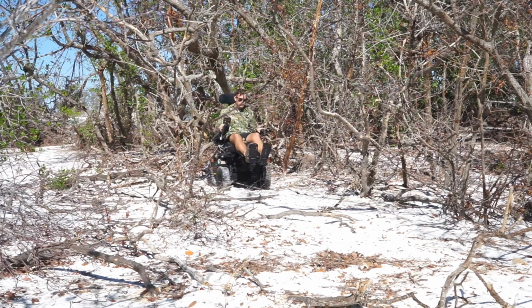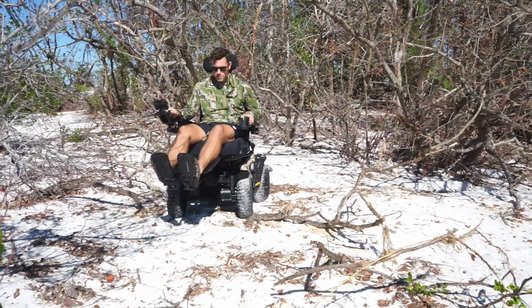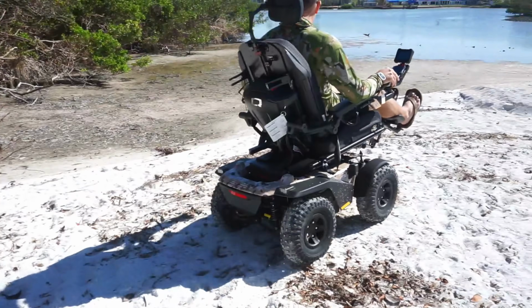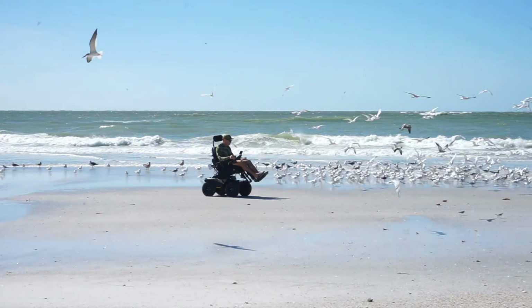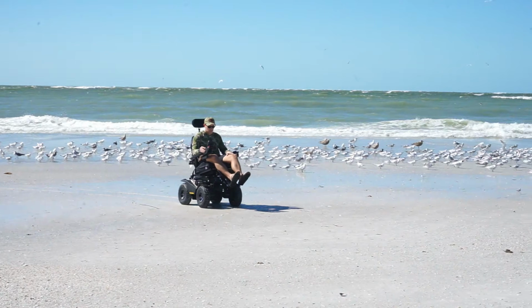So you do have a motor tied to each drive wheel. Now your front wheels are the only wheels that actually turn. So once again, if you're on hard top surfaces, sometimes you can feel like that turning radius is going to be by far the largest out of all the configurations we went over, but it is by far the most powerful unit to be able to navigate trails, sand, really snow, almost any type of terrain that you want to go on. So all-wheel drive, once again, is not going to really be something for inside. It's going to be strictly for outside, but it is by far the best drive configuration.